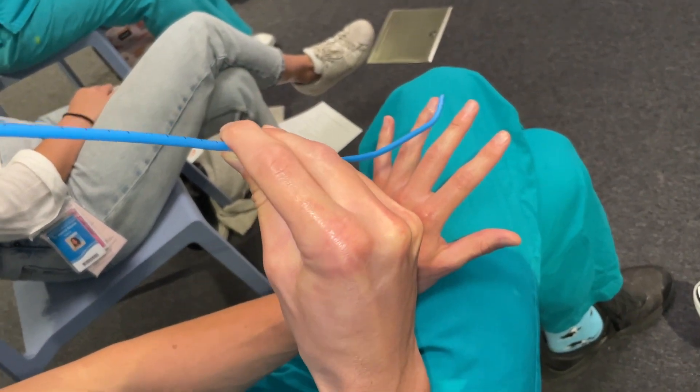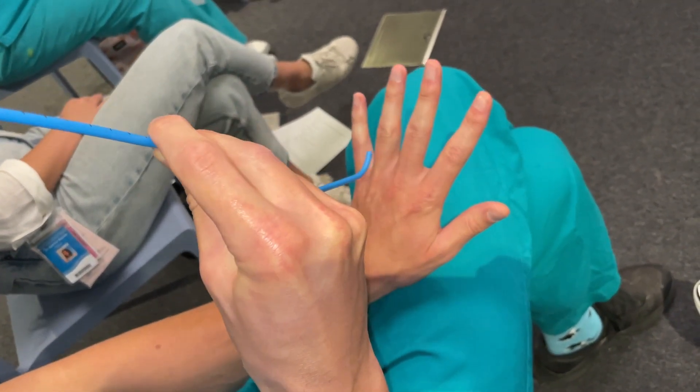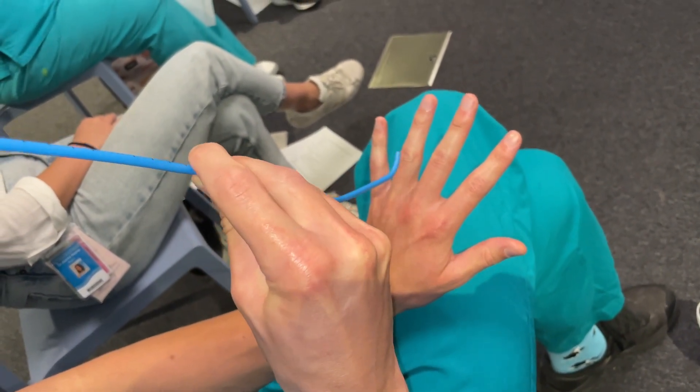Give me your little finger and then ring and then middle finger — nice and easy at the beginning, developing the fine motor control needed for bougie manipulation.